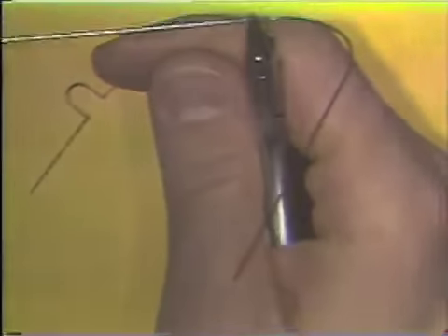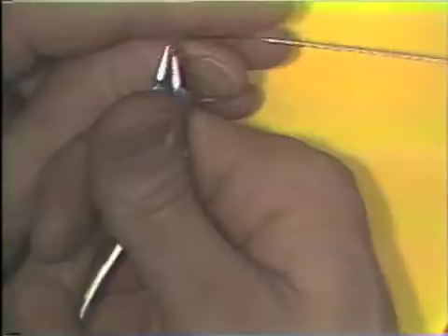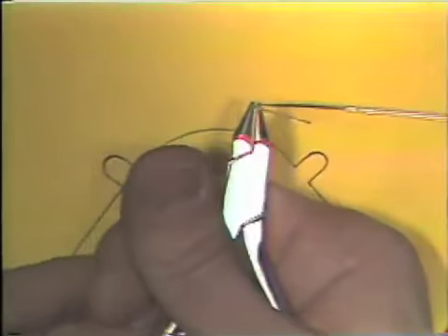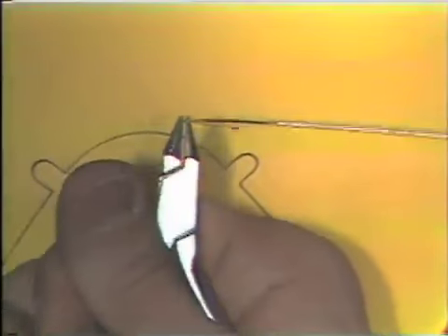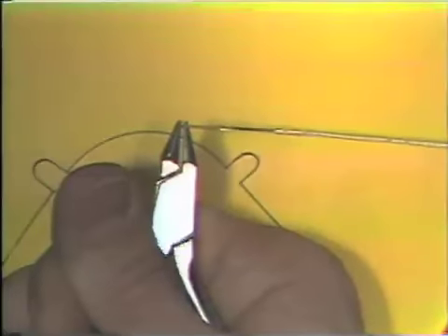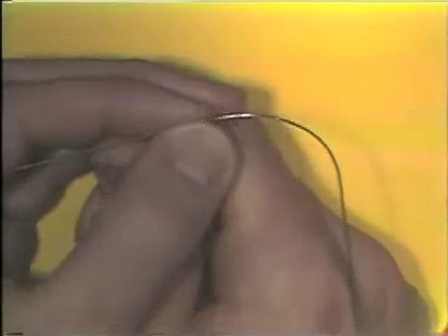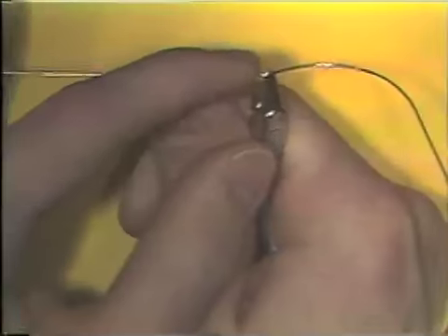The wire is oriented at 90 degrees to the long axis of the beaks of the plier, and the wire is kept directly perpendicular to the flat beak of the plier, if possible, to control the plane in space. When you have the wire properly oriented, the bend is made 1/3 of the way.